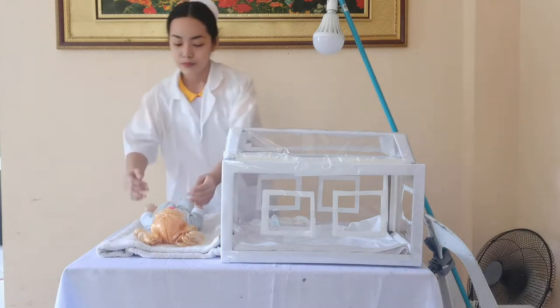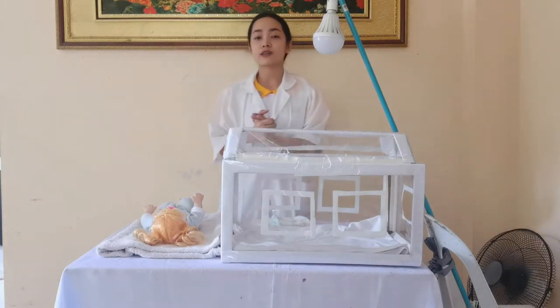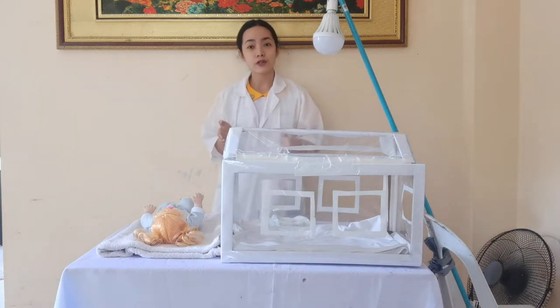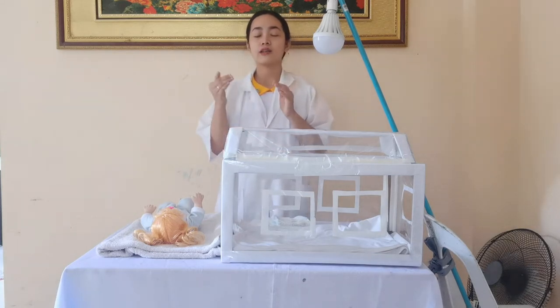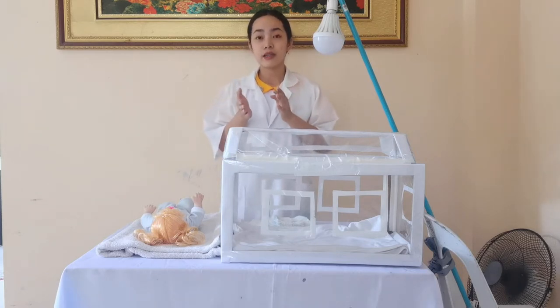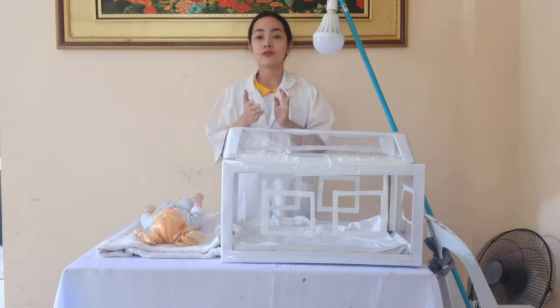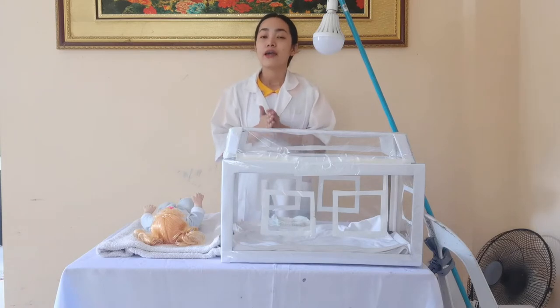After that, we also have to check the doctor's order to prevent errors. Then check the baby's bilirubin level every day, or ask for the doctor's order, because we have to take note if the level is lower than normal or less than 10 mg per deciliter, so we have to stop the therapy. The normal value for a preterm infant is 10-12 mg per deciliter, and 0-3 mg per deciliter for a term infant.